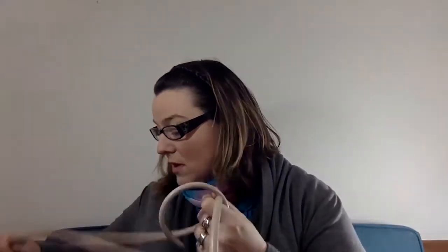The packaging was very well done and very easy to get into. One thing worth mentioning: when you first get this, the tubes are actually connected, so it is okay to go ahead and pull them apart — don't worry, you're not going to break anything and it'll all be fine.